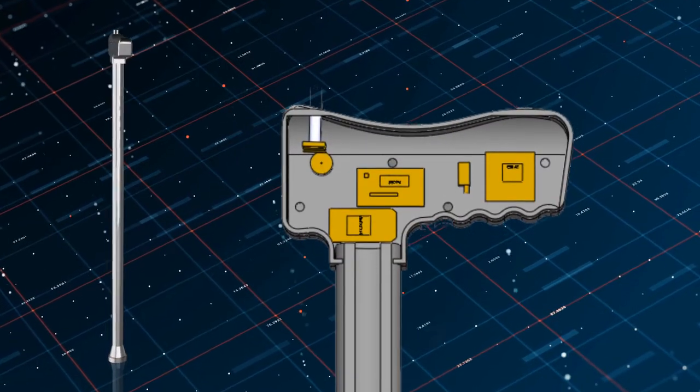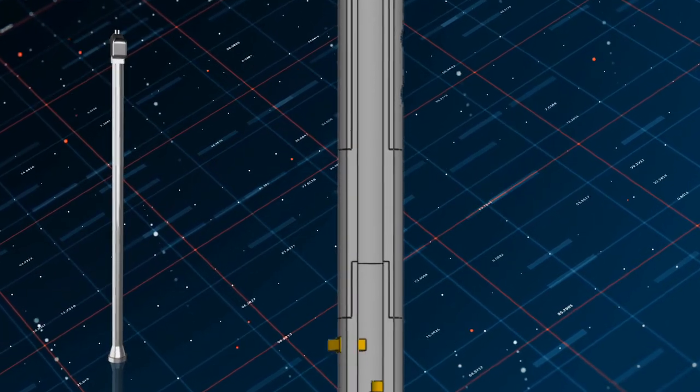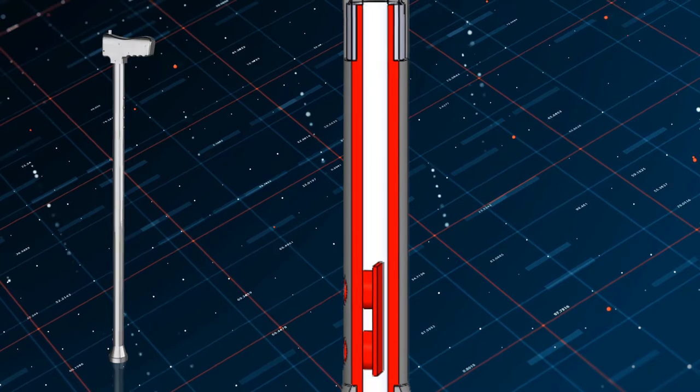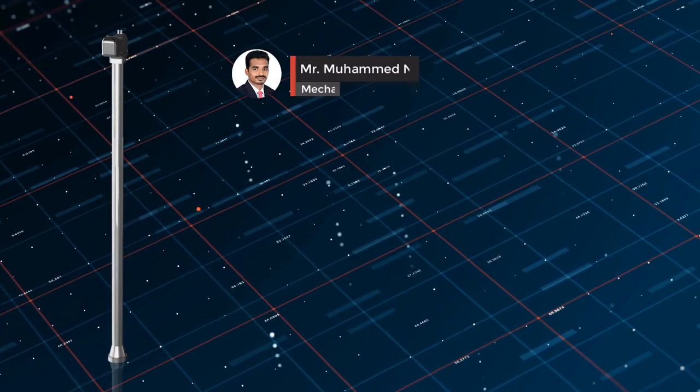I hope you now have an idea about the walking stick. While designing, we faced different challenges such as placing the electronic components within this flexible walking stick design. We addressed this by using three different layers, placing different electronic components across multiple layers.